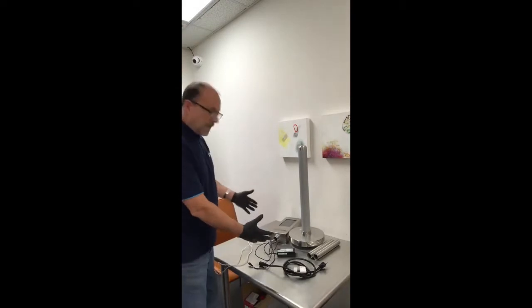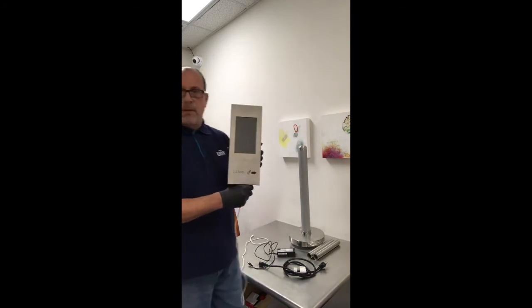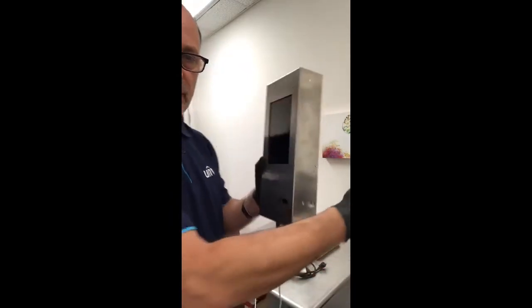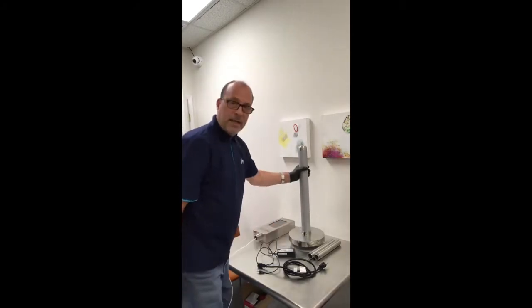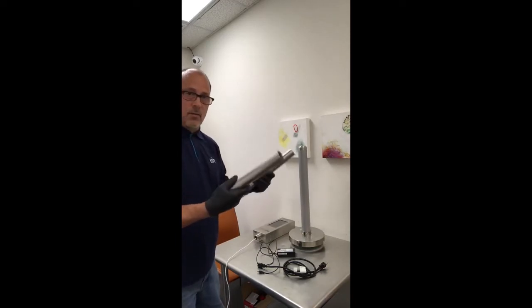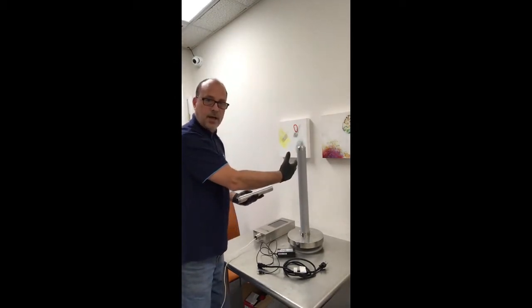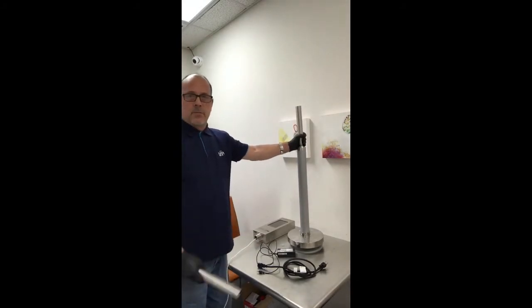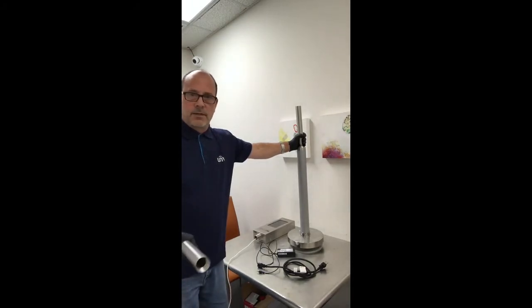I've already got all the components taken out of the box here. As you can see, this is the temperature screening monitor and module. On the side you can see the actual temperature detection module where it's non-contact and reads your temperature from your wrist. We have the mounting base and two mounting base extensions. You can use it directly on the base as a desktop device, or add one section, put it on the ground — it's a good height for reading temperatures in situations such as daycares and elementary schools.